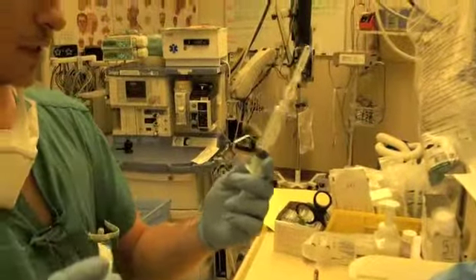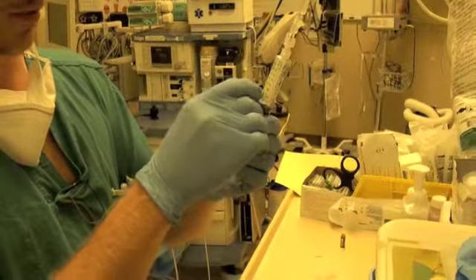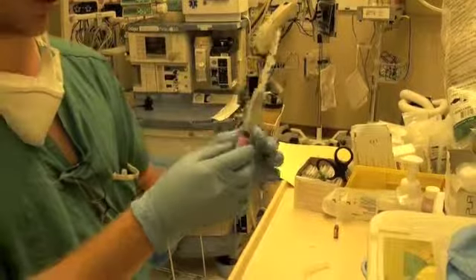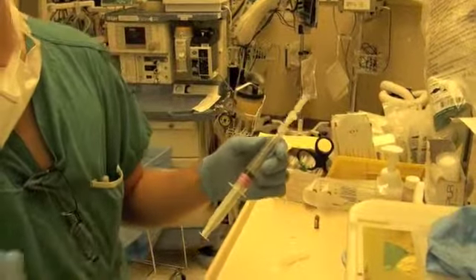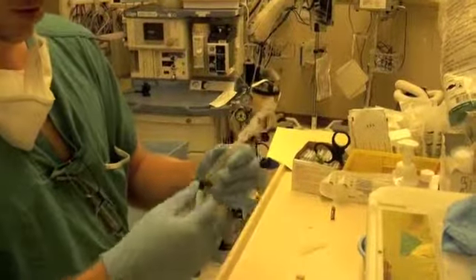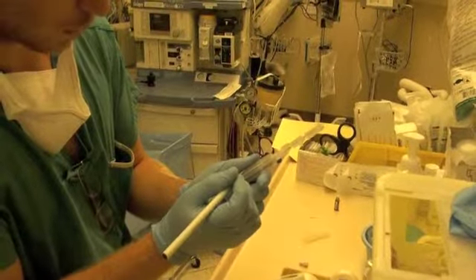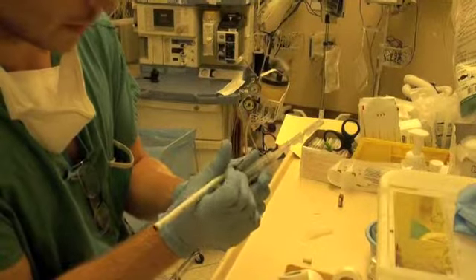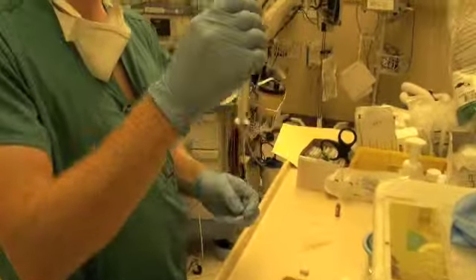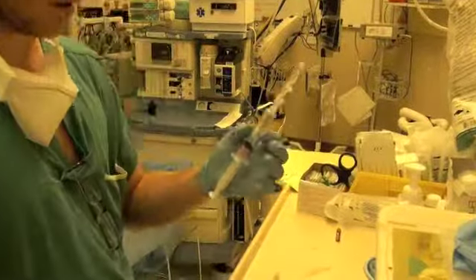And there's different ways to label the syringe, but one of the ways is to actually put the label just at the bottom of the volume mark. So when you're pushing the medication, you can see what the volume's at and stop at the desired volume. And then we write our concentration on the label itself. So if it was 50 milligrams per milliliter, and we've diluted it at 1 in 10, now we're at 5 milligrams per milliliter. So now we've got some 5 milligrams per milliliter ephedrine here.